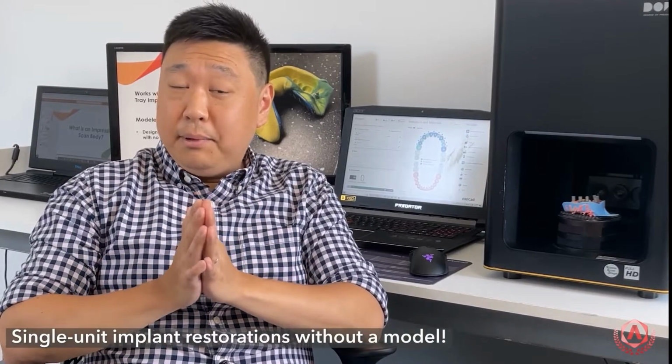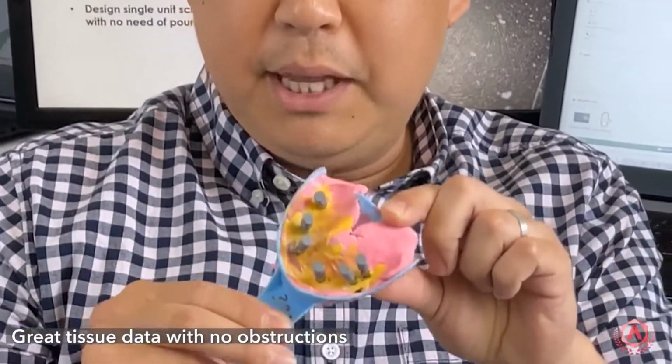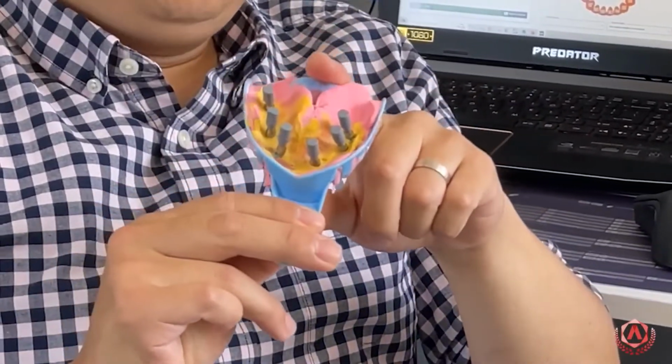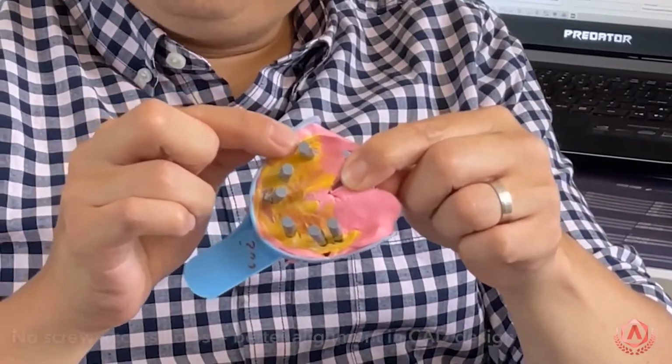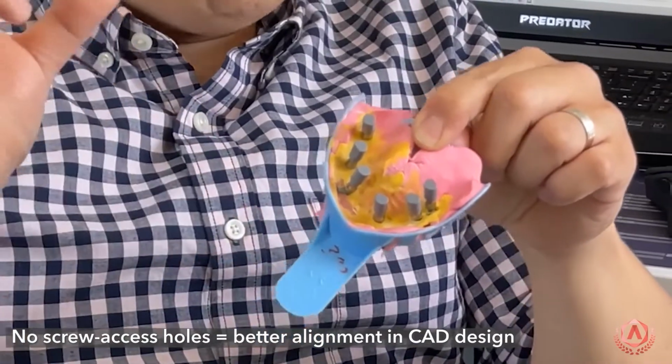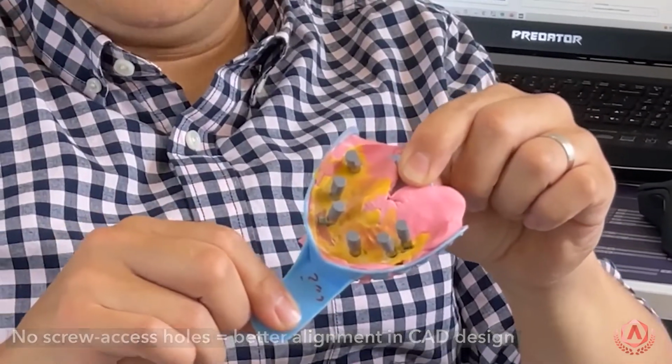One of the very first benefits of these scan bodies is the fact that you can actually proceed with single unit implant restorations modelless. Now next benefit, the fact that from this impression itself, you have great tissue data to actually be able to scan with no obstructions. Another benefit, the fact that you do not have any screw access holes on these scan bodies itself, it helps you achieve better alignment during your CAD design.